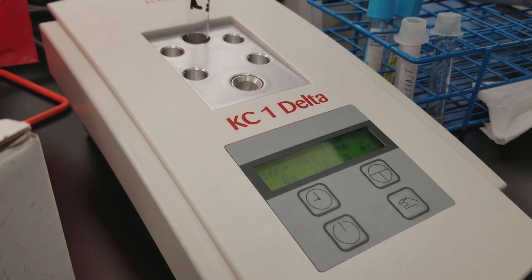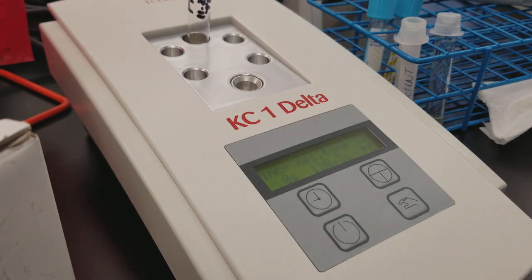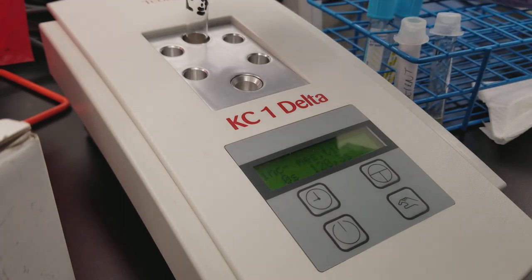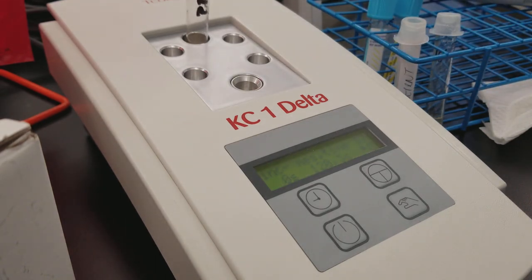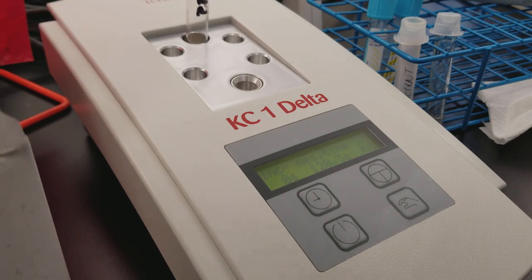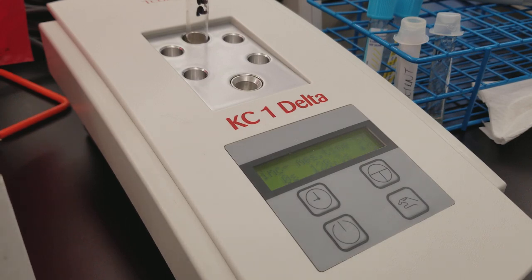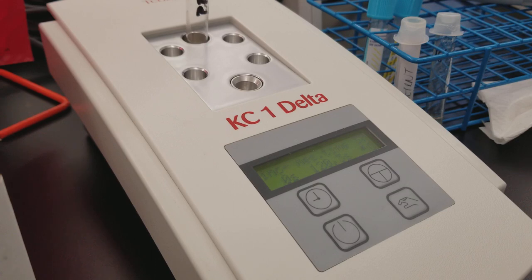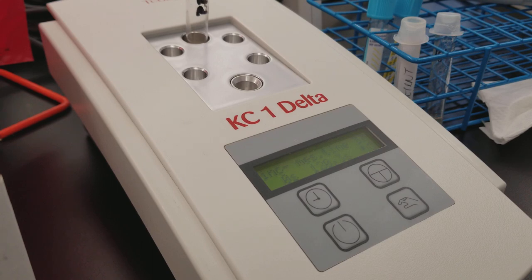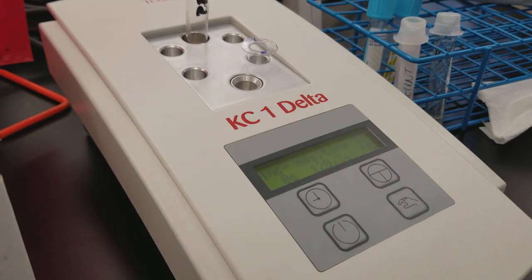So when you do your testing in class or if you're using this analyzer, make sure you realize that you can't — unless you have a heat block, which would be great because then you could just put it in the heat block if you wanted to do the patient's PT and PTT at the same time. We're using the little cuvette just like we did in the PTT video, and we're going to perform the PT on both of these patients — patient 8 and patient 15.